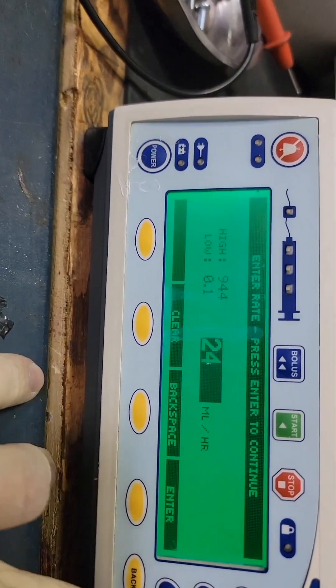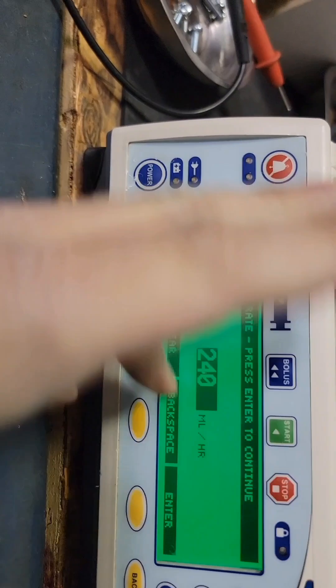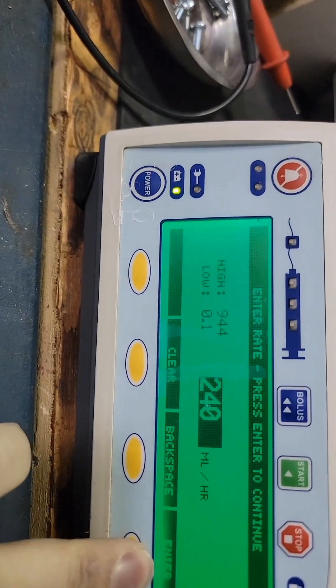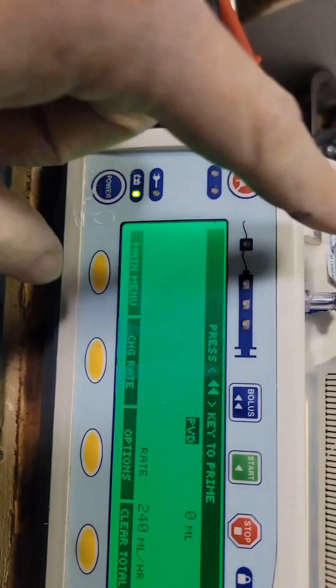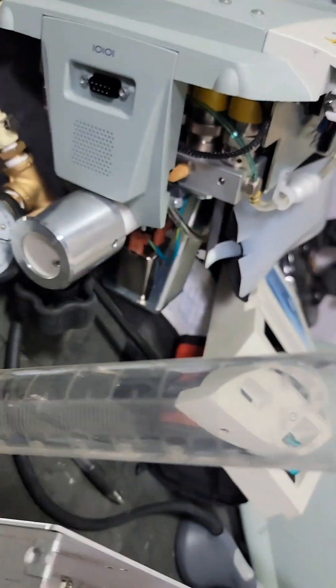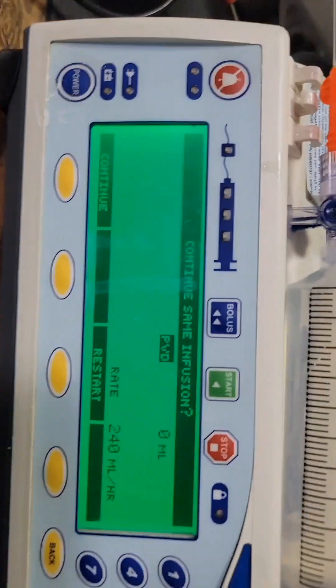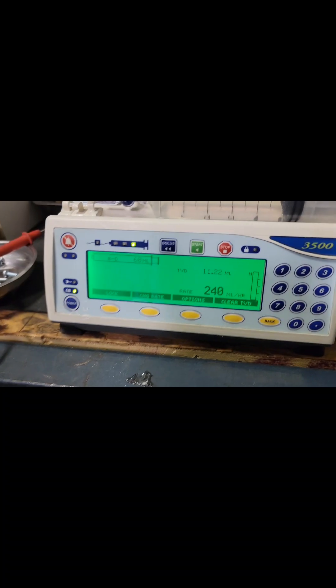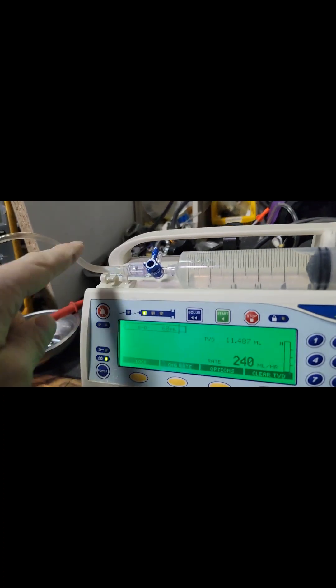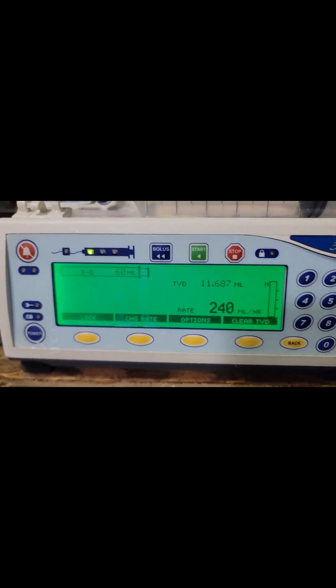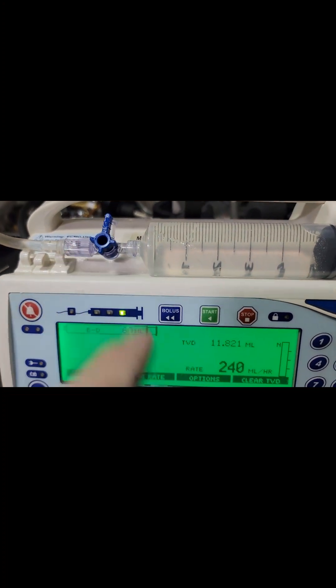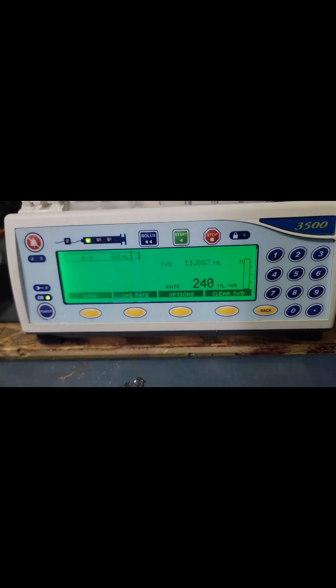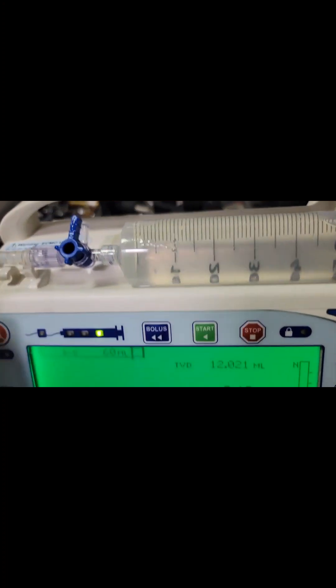1 to 60. I want 240, so we're going to go 240 for the rate. I know it takes 15 minutes. Next up I'm going to run a line from here to the graduated cylinder. So there we go, we're now running, we're actively running. This is our setup, prime the tube if you want accurate results. We're just wondering, I've got this gauge on here because you should also check occlusion, occlusion is important.